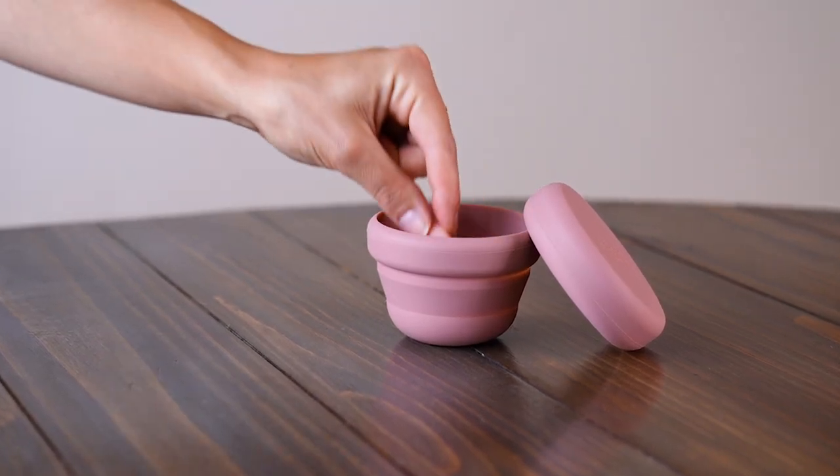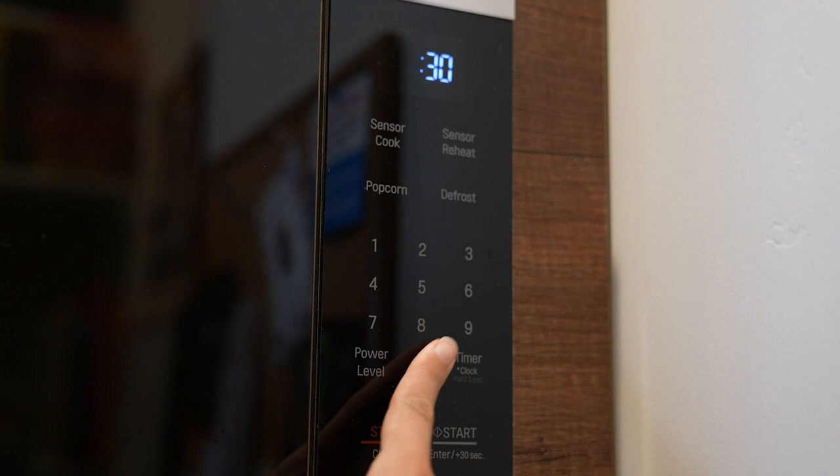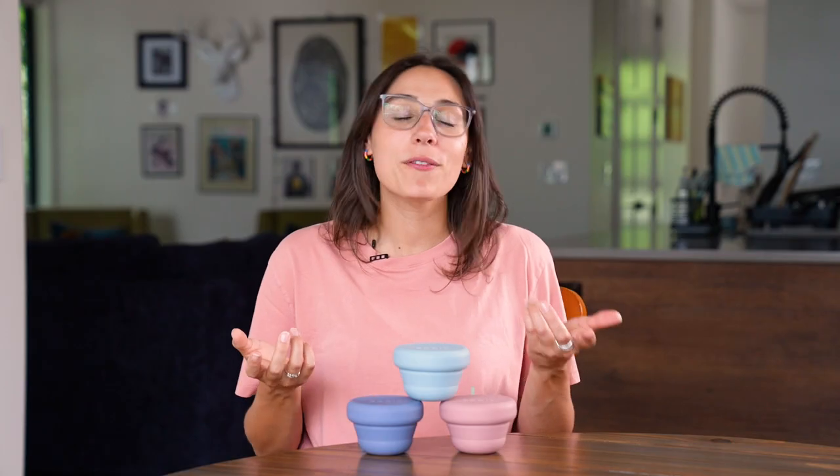Or fill it with water, add your cup or disc, and put it directly in the microwave for about three minutes, or whenever the water reaches a rolling boil — because microwaves vary.